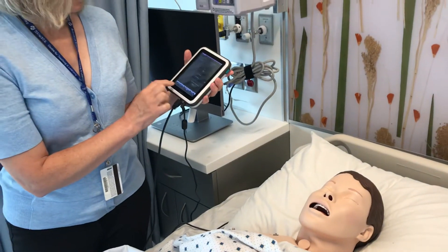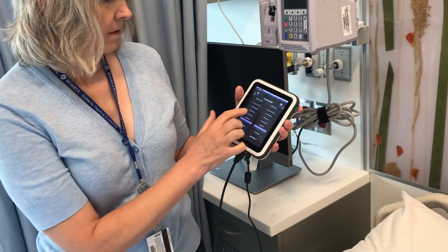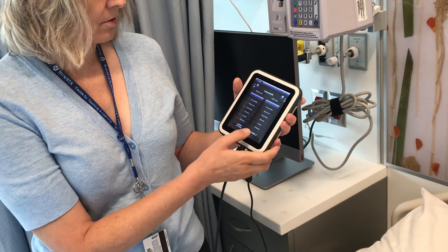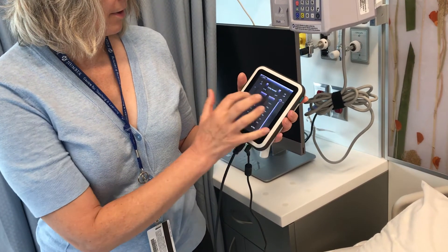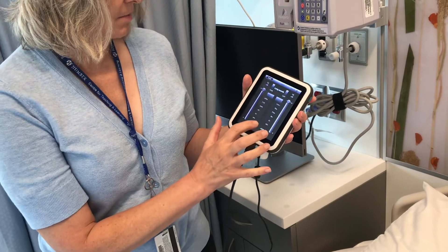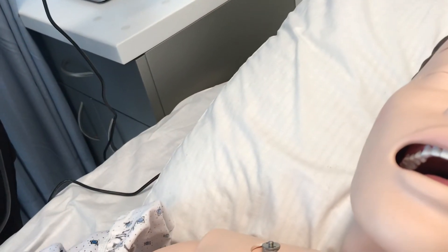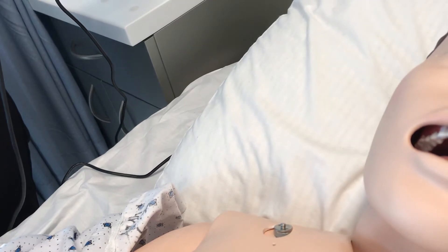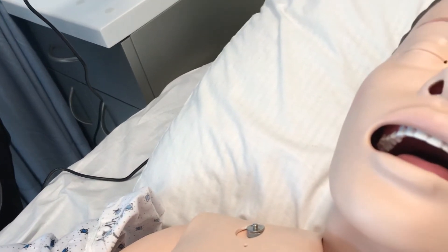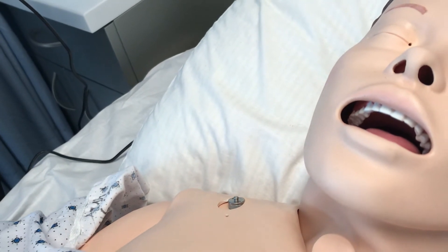To change the sound, I go back to the lungs — lung sounds. I'm going to choose coarse crackles. And because we're videotaping, I'm going to put the volume up just to the maximum. So we're now going to change the pattern to coarse crackles, which you can hear now.